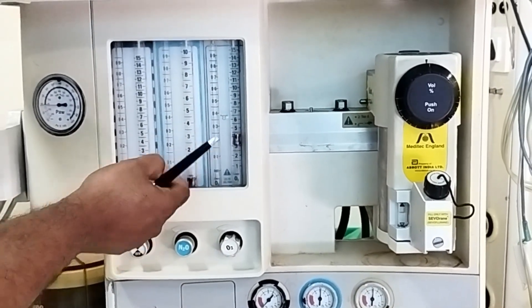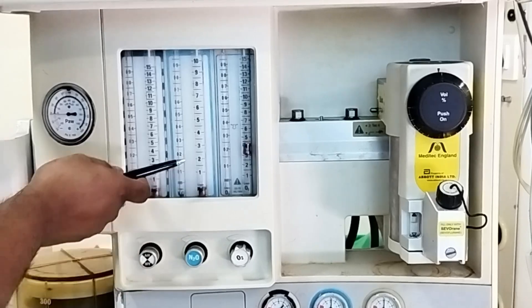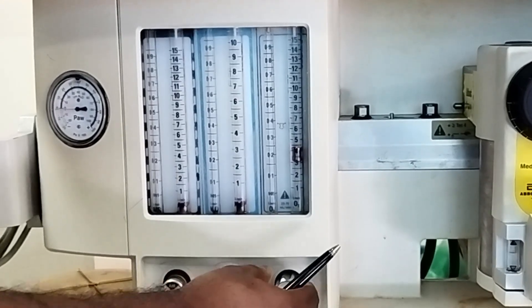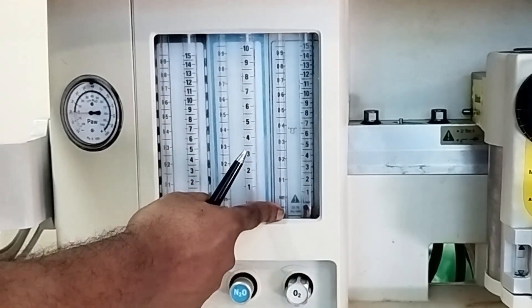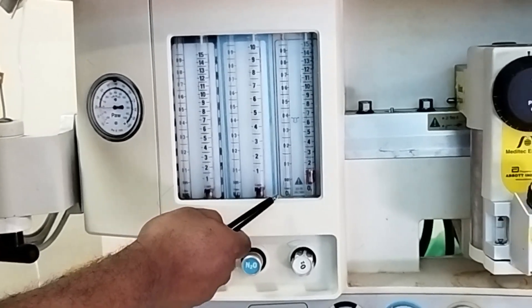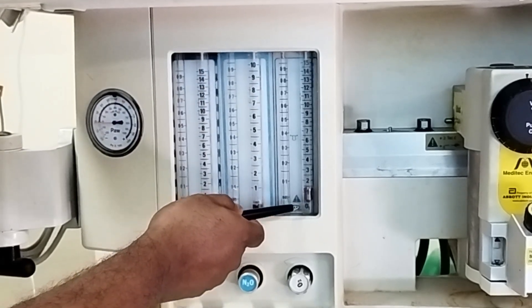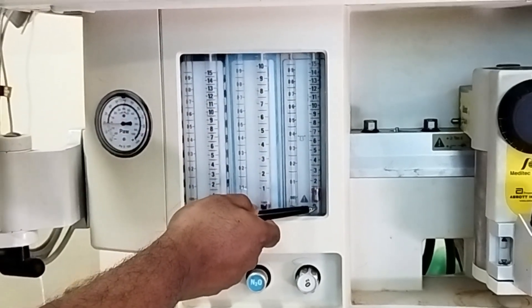Here you can also see that even in the backdrop, there is a color code: white behind oxygen, blue behind nitrous oxide, and black and white behind air. One more thing to note is that for each gas there are two side tubes — one narrow and long, and the other relatively broader. These are calibrated: the first one is calibrated for flow from zero to 1000 mls per minute, and the second one from zero to 10 or 15 liters per minute.